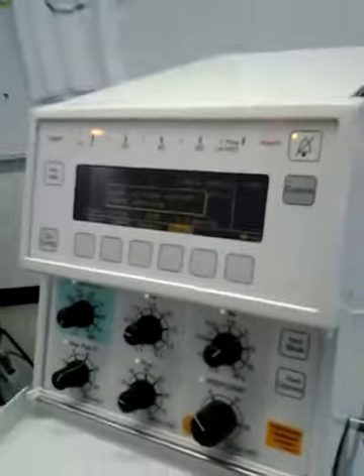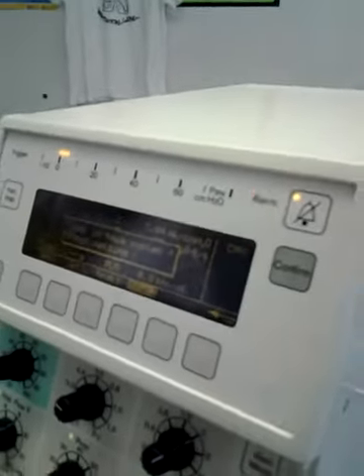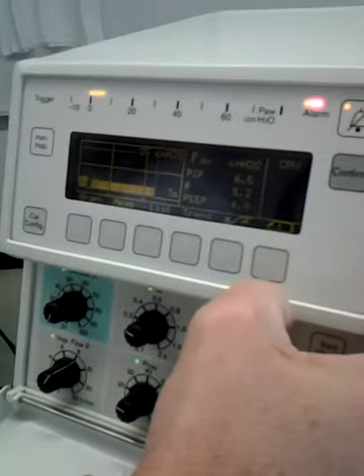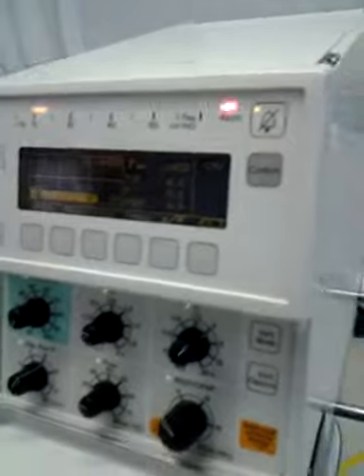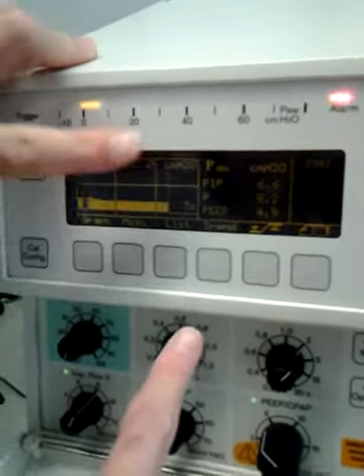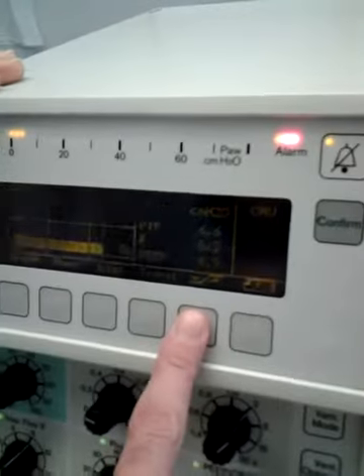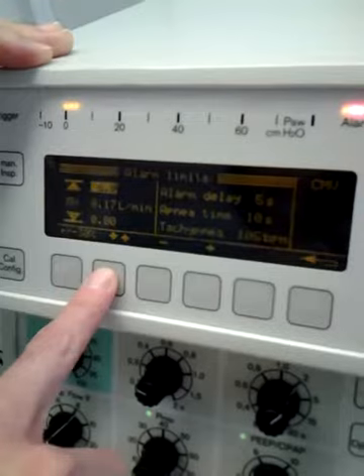Do you want to go through all the settings? Look at the main one, and say this is this, because they will have it for practical too. Okay. Then here. And you're back to your other screen. Okay, so the main screen, let's just go through all the buttons again. This? That's your alarm list. How do I get to the main screen? This is it. This is the main screen. Okay. So this is my alarms. You have to scroll to find it, and then you do plus or minus to change.